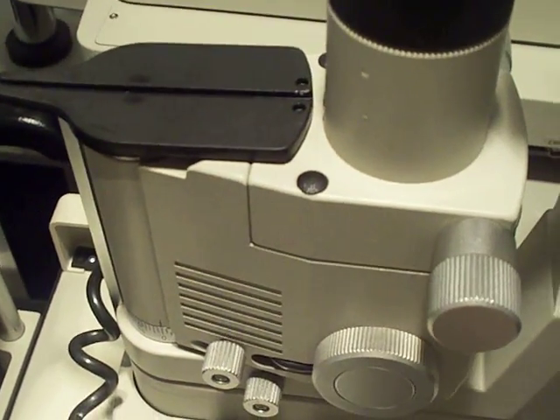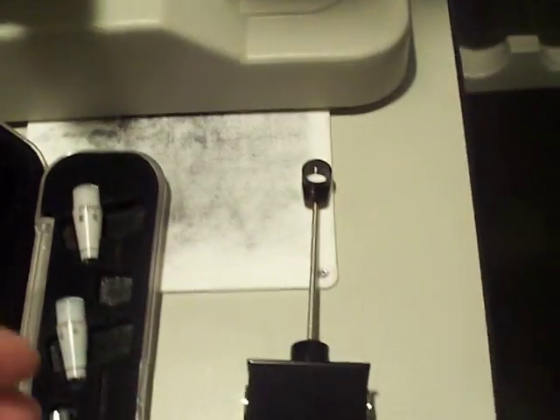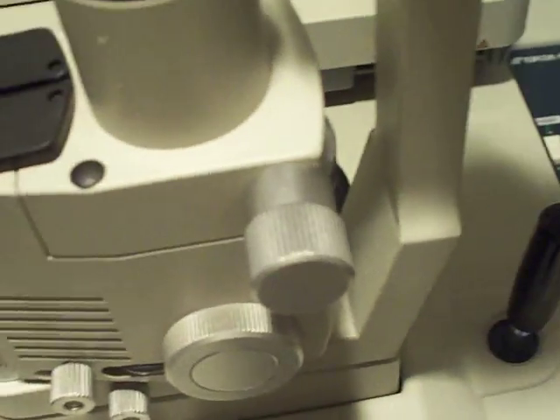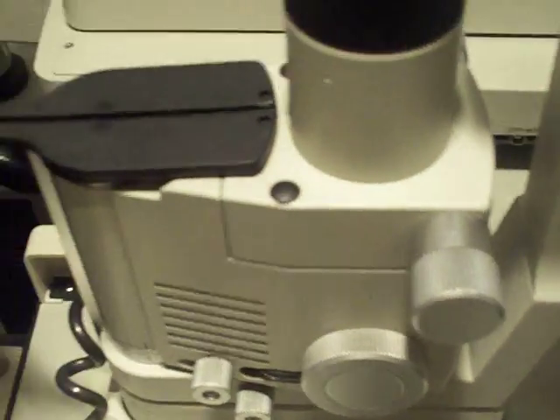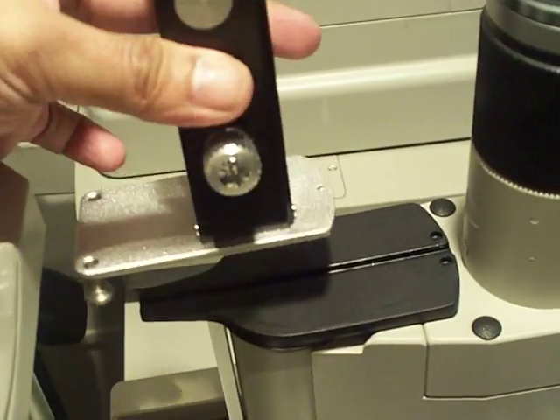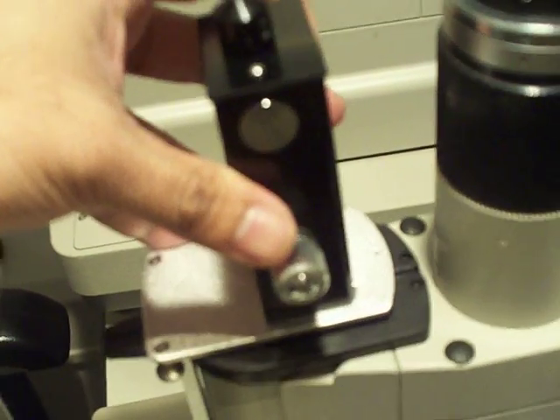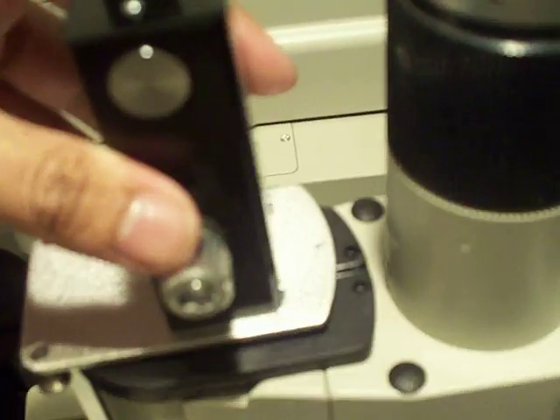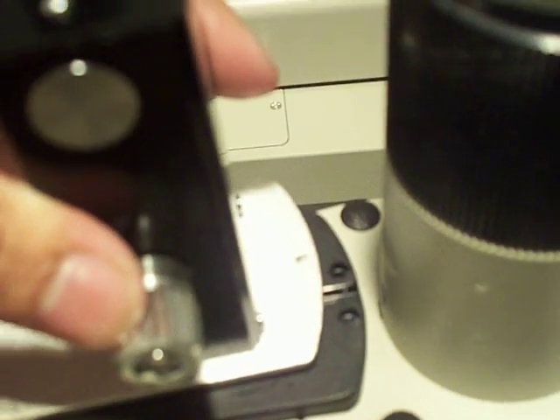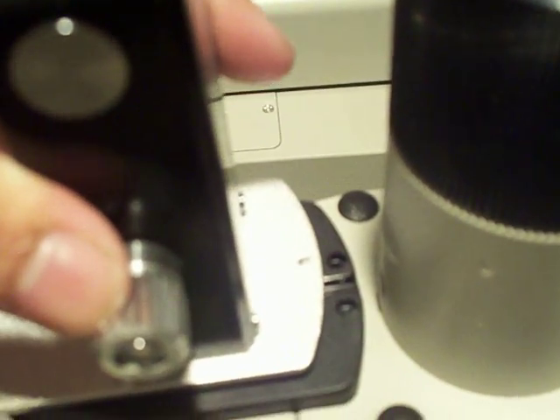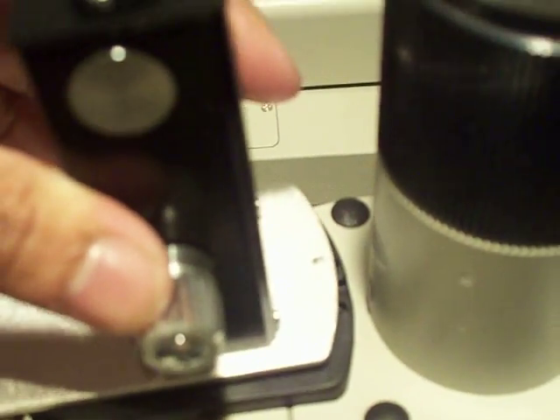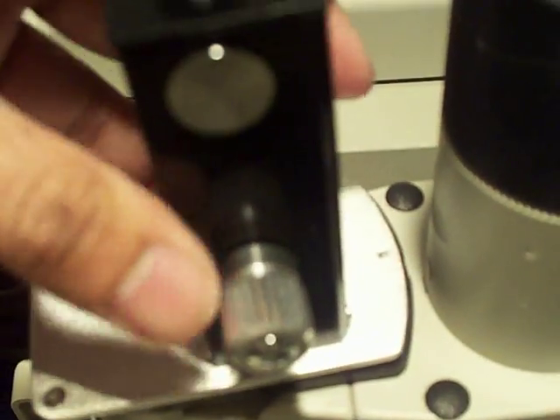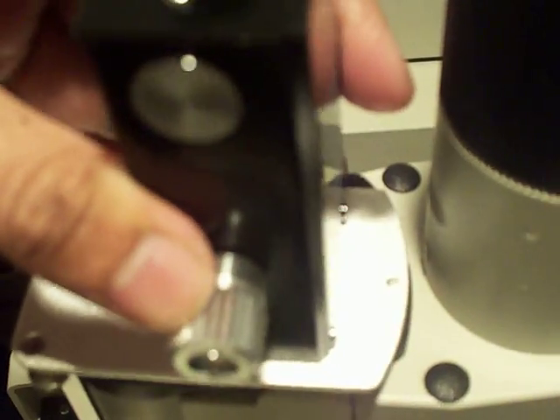Then you take your Goldman tonometer and simply slide it in place. Before you slide it in, you'll notice there are two holes there. Depending on which hole you want to take measurement from, you place it either on the right hole or the left hole.